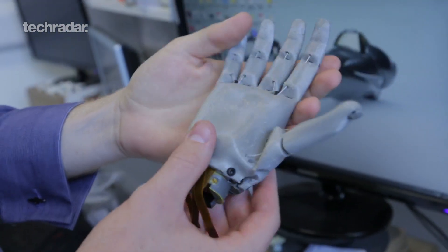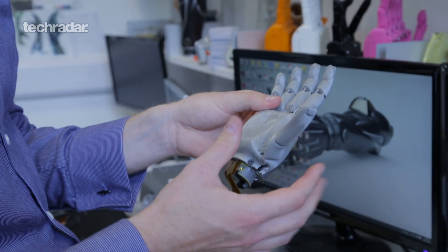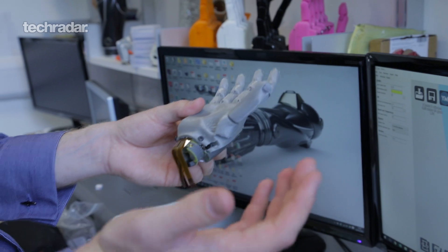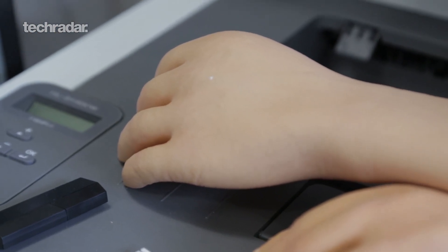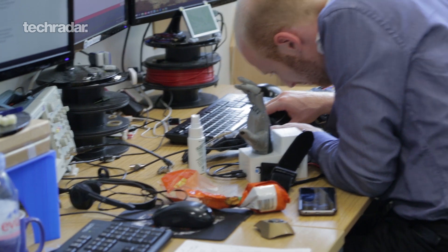This next iteration is the kid's version — actually the smallest multi-grip myoelectric prosthesis that, to our knowledge, anyone has ever worn. When I was a kid I used to have a prosthesis that didn't do much. They put stickers on it — I got the stickers myself, loads of Simpsons stickers — and that was as customized as it got back then. So when I show especially this arm we're wearing right now, the reaction is overwhelming for me, because when I was a kid I dreamt of this. I literally thought one day this might happen, and here I am showing you what it's like.